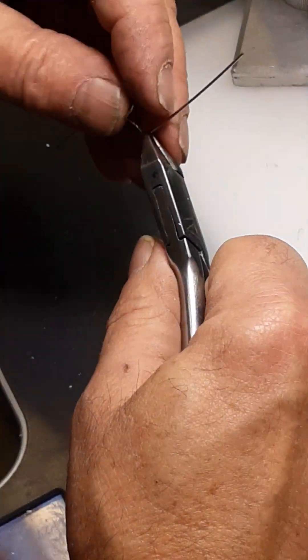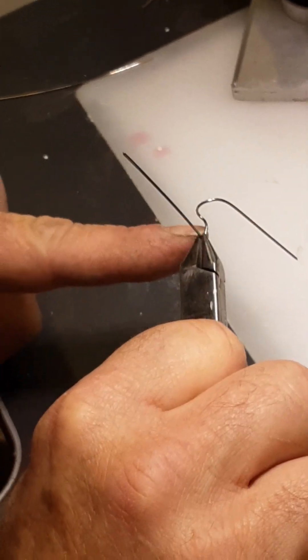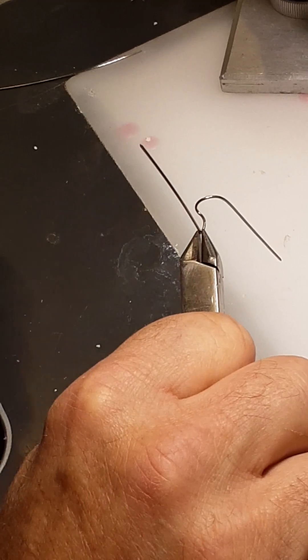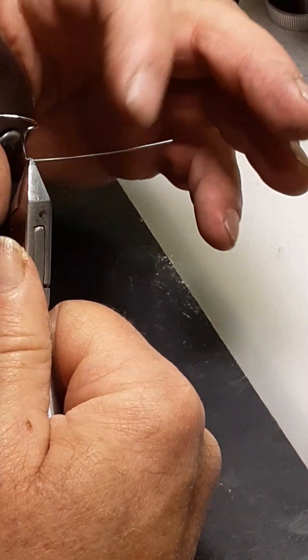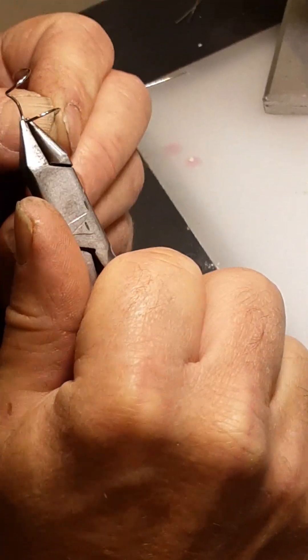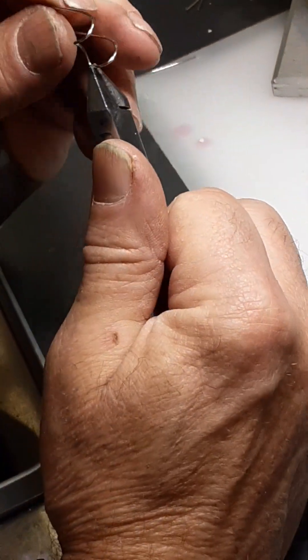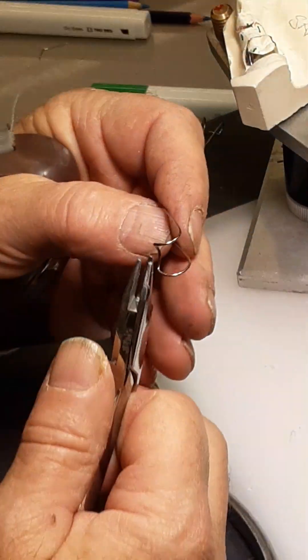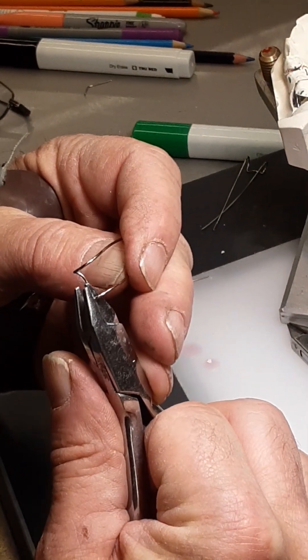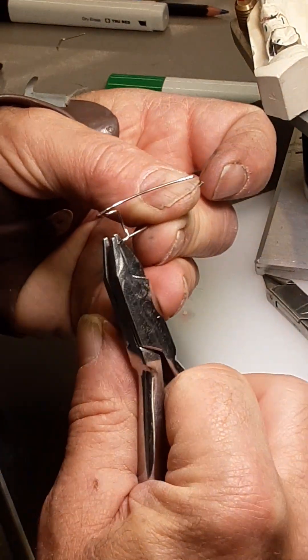Come to the other side and grab it. I've got the curve here around the distal of the abutment tooth, straight with the plier. I'm going to grab the corner, take the wire fairly far from the plier, and make another fairly wide and gentle bend. I want to adjust these loops a little bit — your three-prong pliers work pretty well for adjusting the shape and size of the loops.